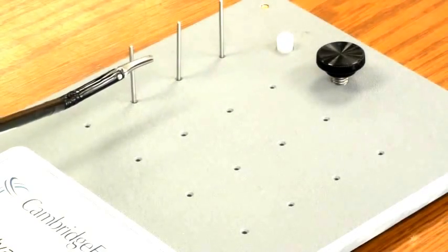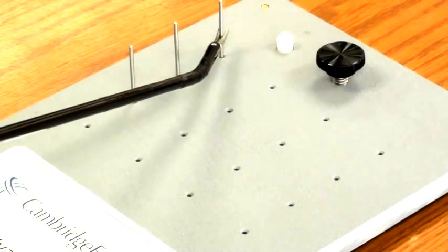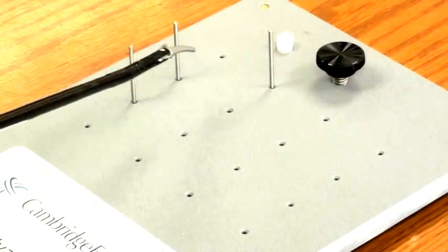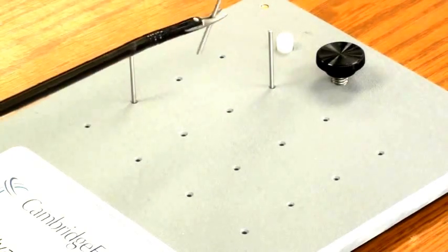With the autonomy dissector, grasper, or needle holder, the surgeon can practice the basic manipulation of autonomy by moving the pins around. Try to grab the pins from various angles and also flip the pins using the rotation knob as you transfer the pins from one hole to the other.